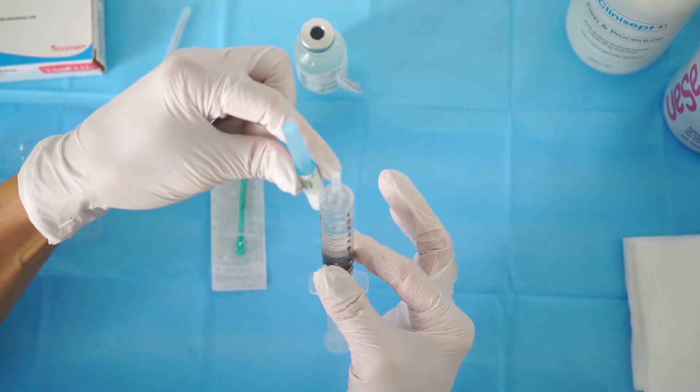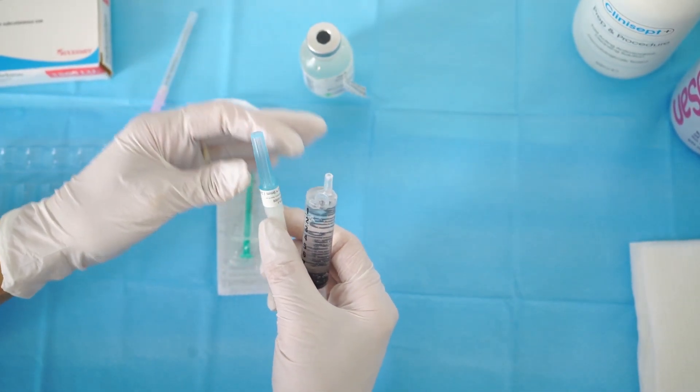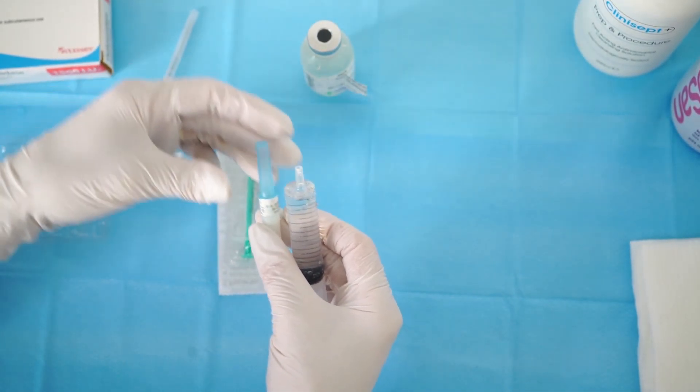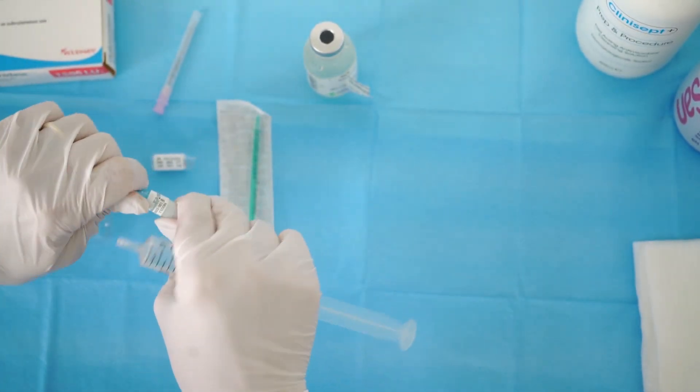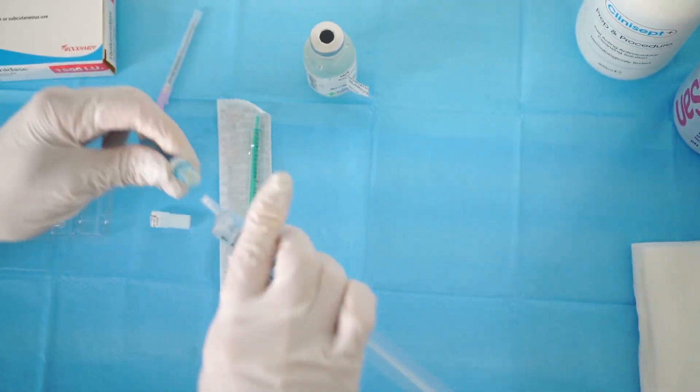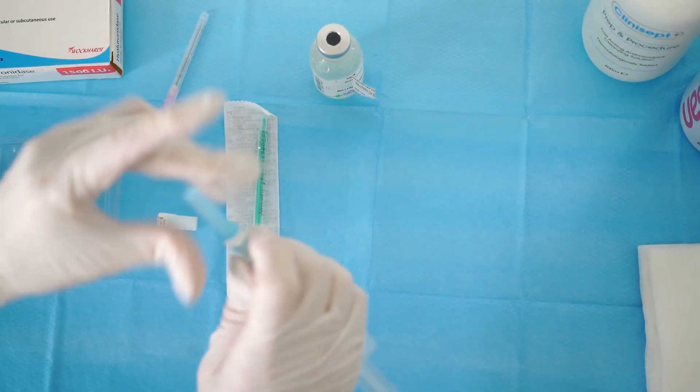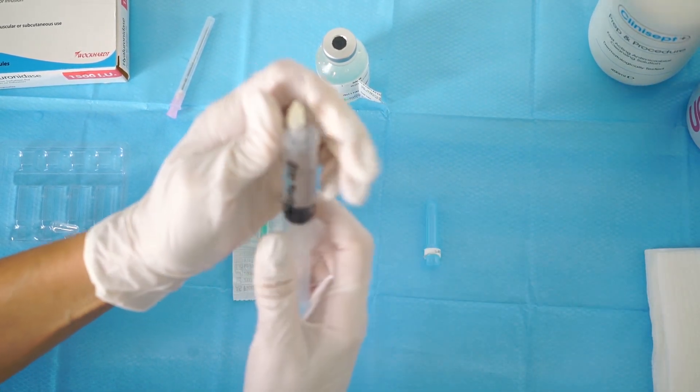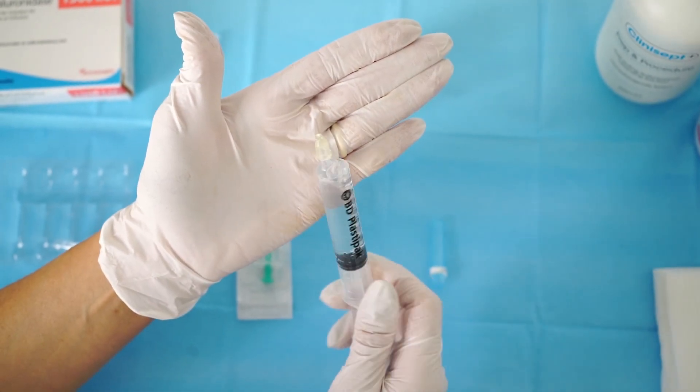And then as I said, you can either use this one or you could use, if you prefer to transfer it into one of the other ones, one of the little connectors and transfer it into a small one. But usually you're in a rush, you don't want to run, so the best thing is to go directly onto this one. Then prime your needle and you are ready for injections.